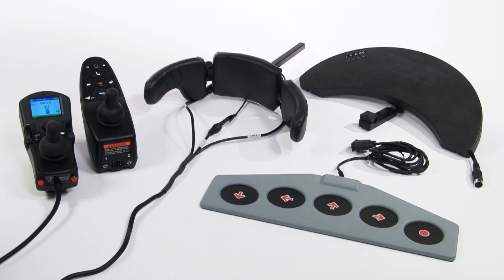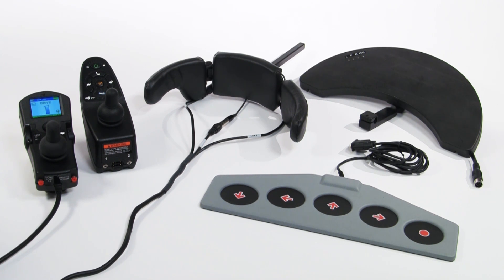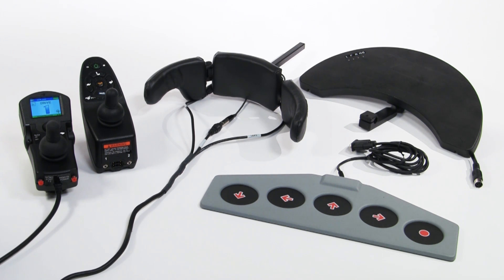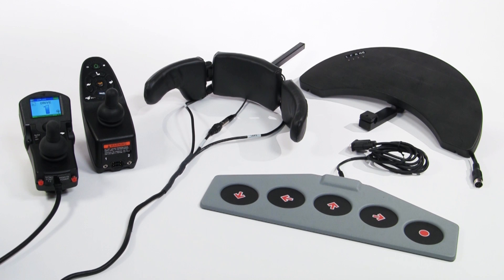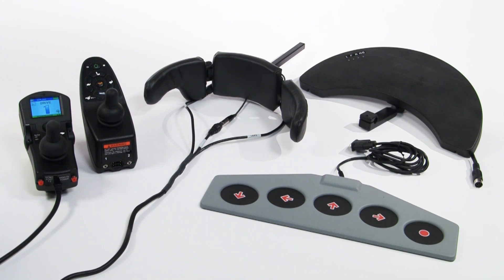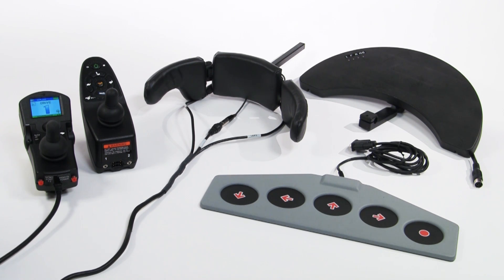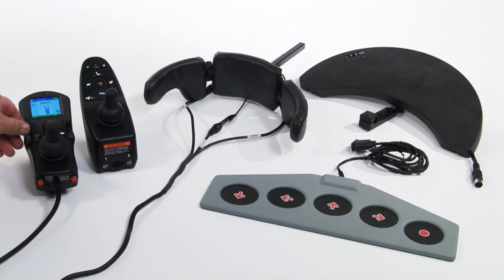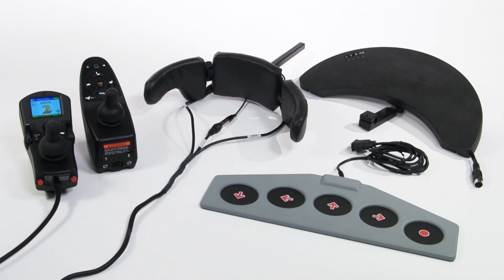There are two primary ways to drive at different speeds when using a switch driver control. One is by using latched driving, covered in another video in this series. The other is by simply switching to a different drive profile that's programmed for a different speed.